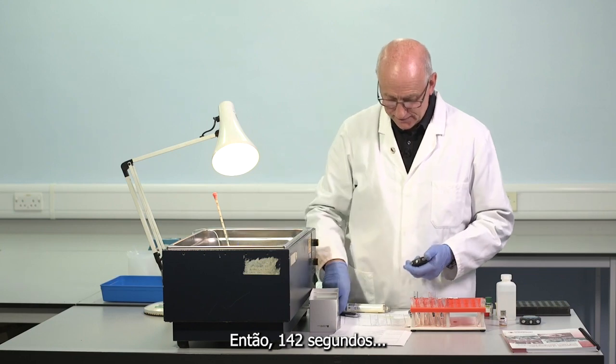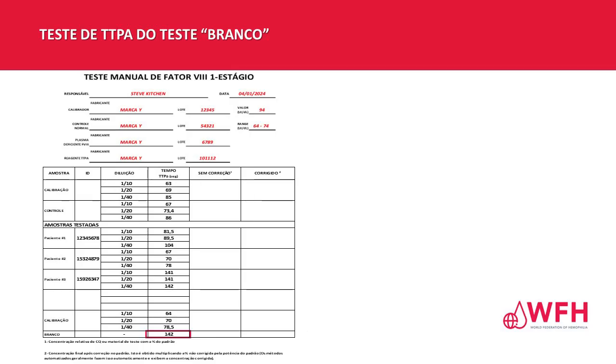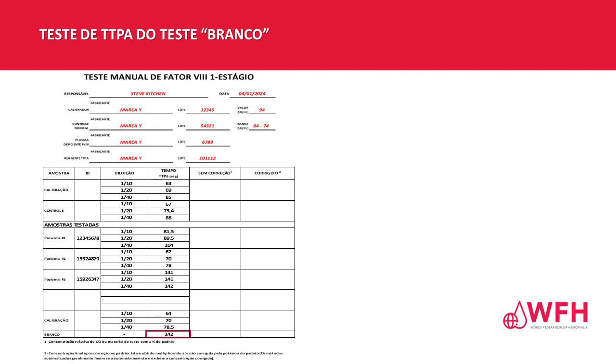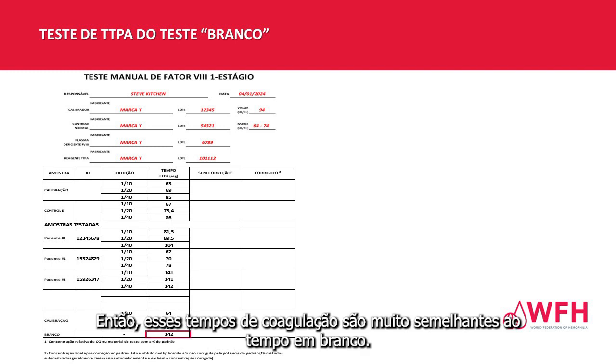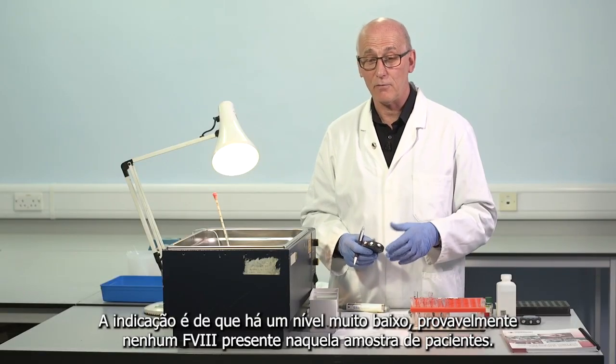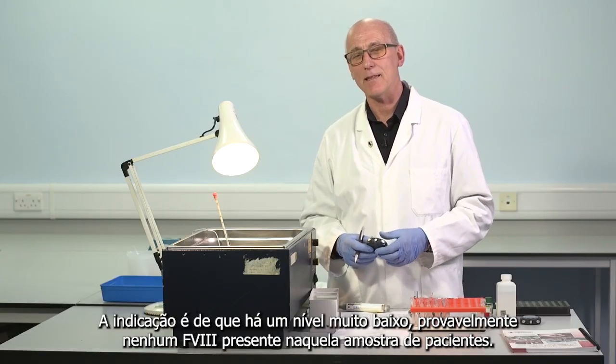So 142 seconds. Now, if you remember, that's very similar, almost identical to the times we obtained in one of the patients at different dilutions. So those clotting times are very similar to the blank time. Indication being that there is very, very low level, probably no factor VIII present in that patient sample.